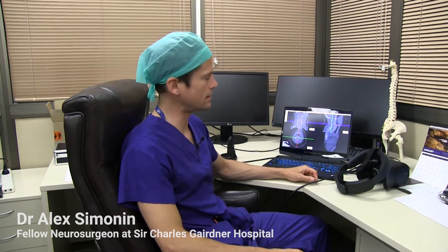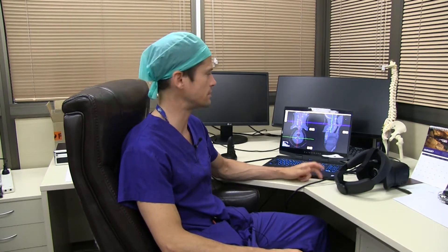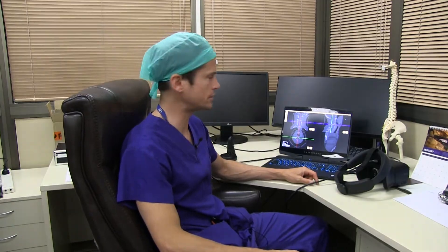Hello, I'm Alex Simonin. I'm a Swiss neurosurgeon and today I will demonstrate how MedVR can assist with the surgical planning of a patient with a C3 lesion.